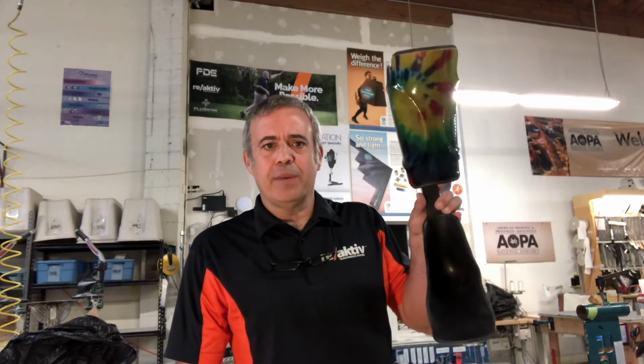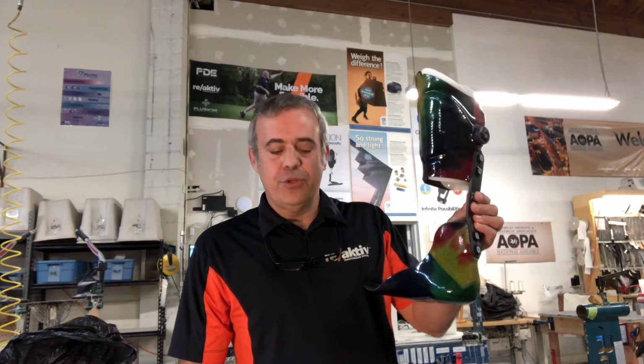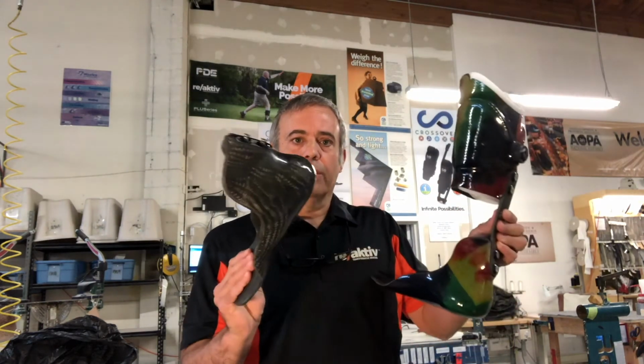One of the best aspects and one of the things that makes our brace unique is the fact that it is modular. Everything comes apart, everything can be changed and tuned to specifically fit the patient. What that means is that you go through an initial fitting period determining what that patient needs, and from there forward it becomes support for the most part.